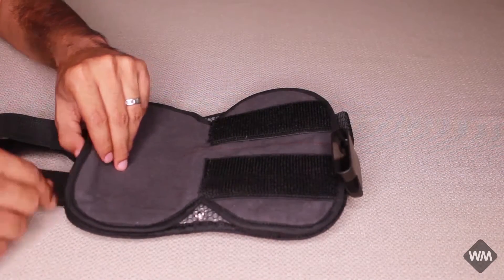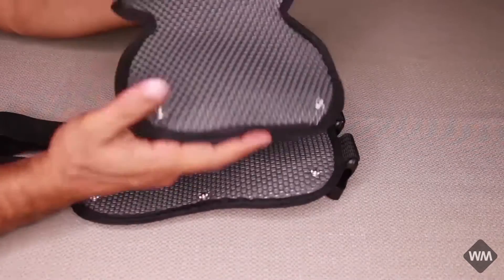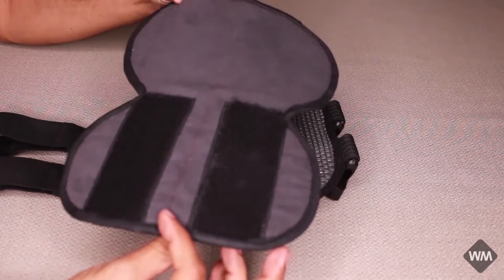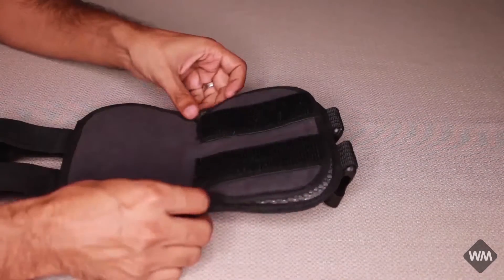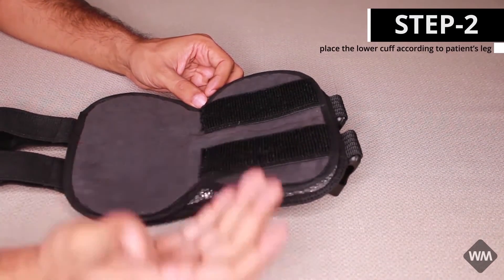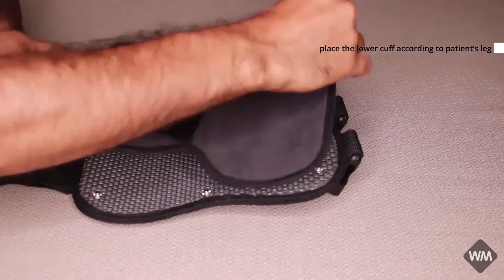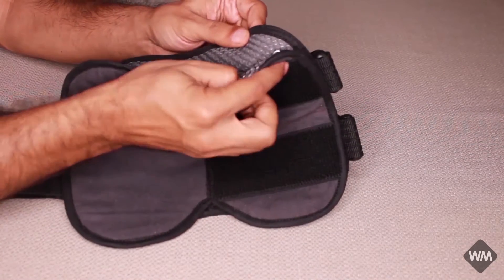This is the inside of the cuff. It can be removed and washed as per the need of the patient. Depending on the patient's leg — if it is left or right — this can be moved and then attached with the buttons.